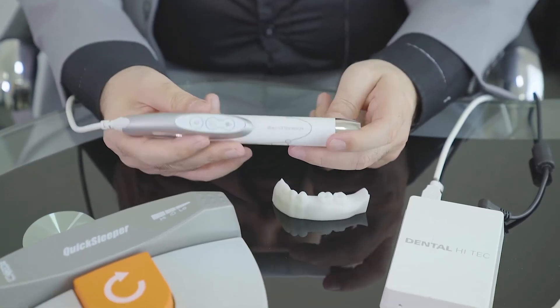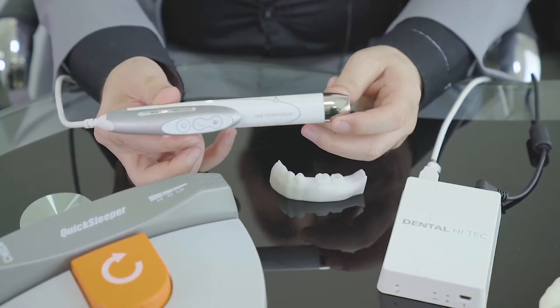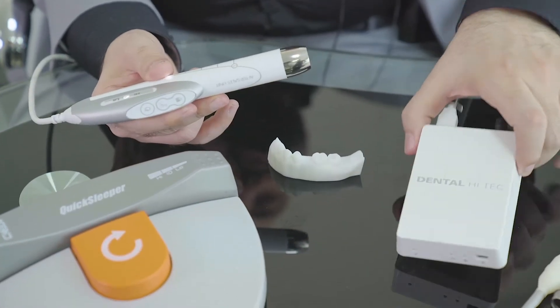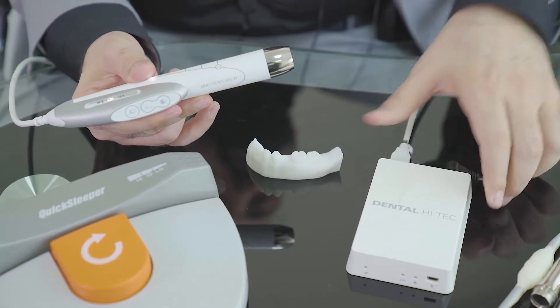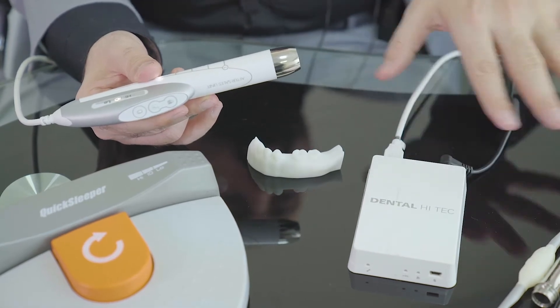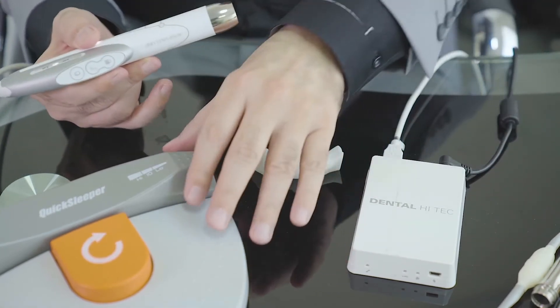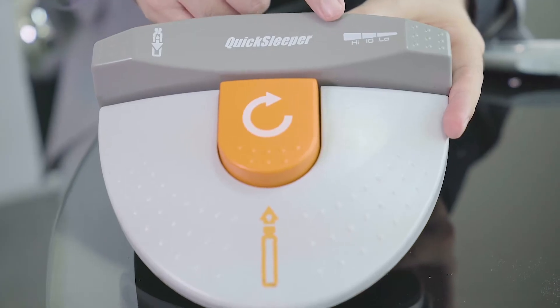Let's talk about Quick Sleeper parts. Quick Sleeper uses this handpiece, a magic pen connected to the computer. It's the brain going to the power supply. That's all. This whole machine is controlled by this wireless, chargeless, and battery-less footpedal. It has four pads.